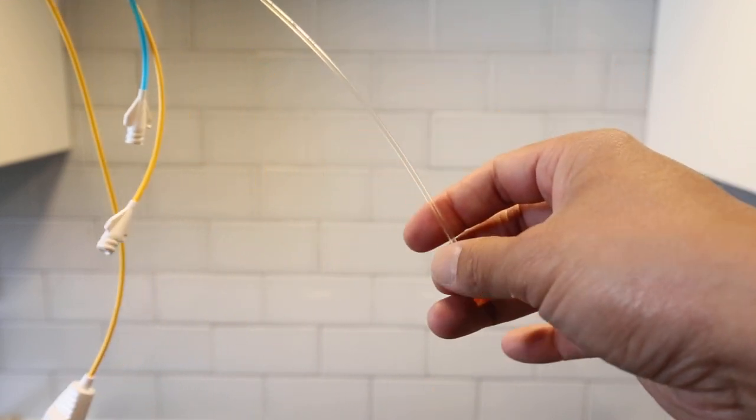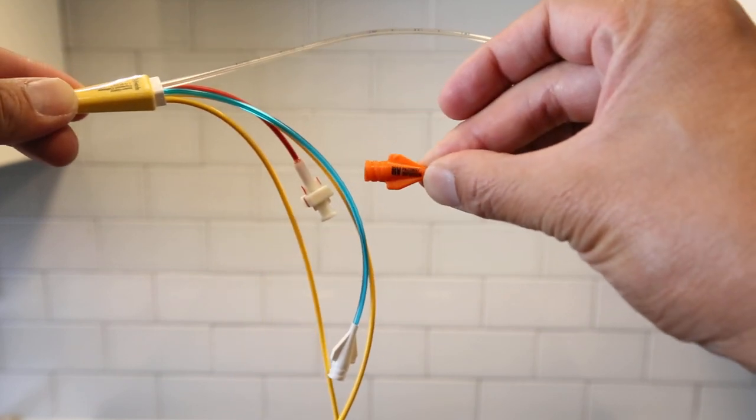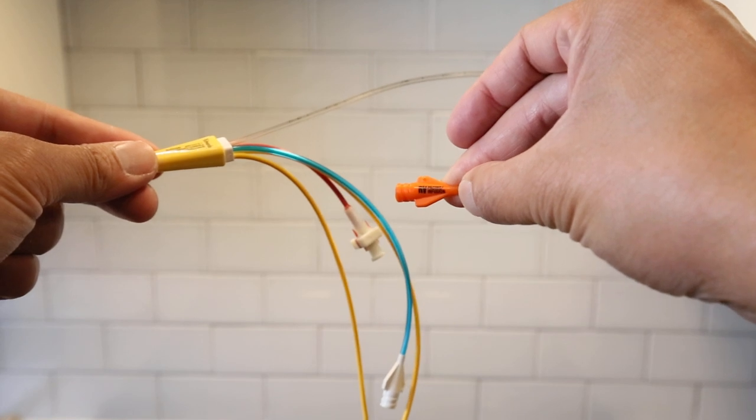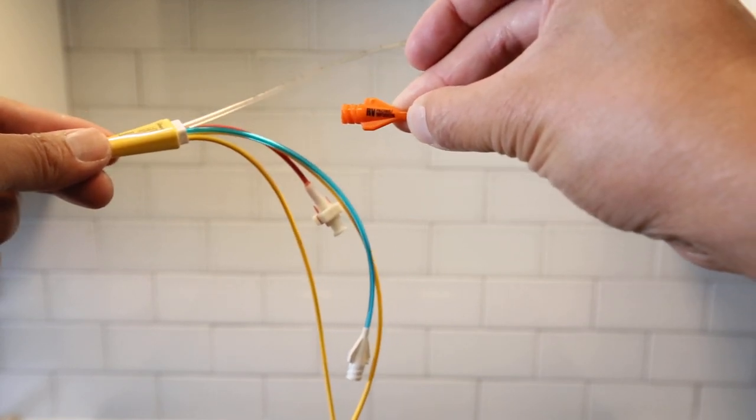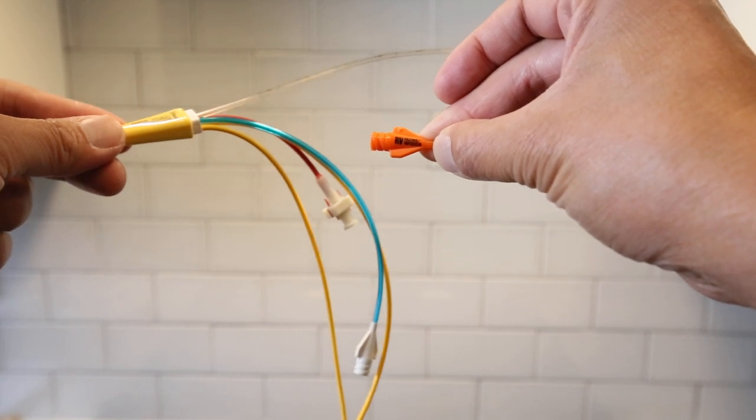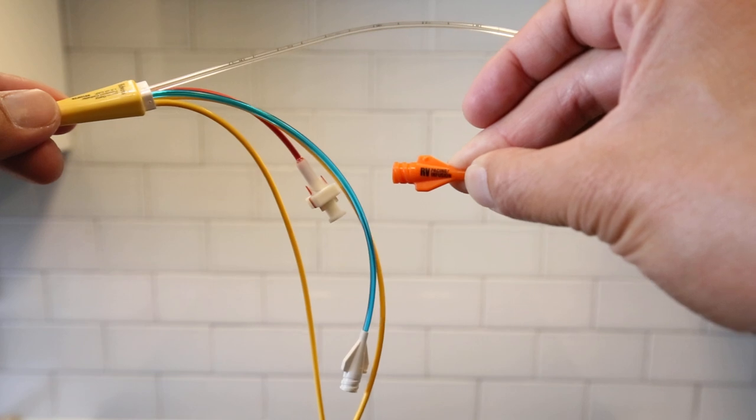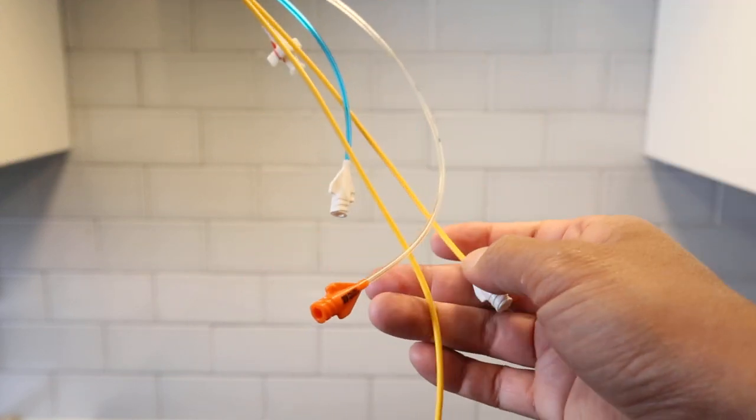And the next one you have your distal lumen RV pacing infusion. I don't know if you can see that.